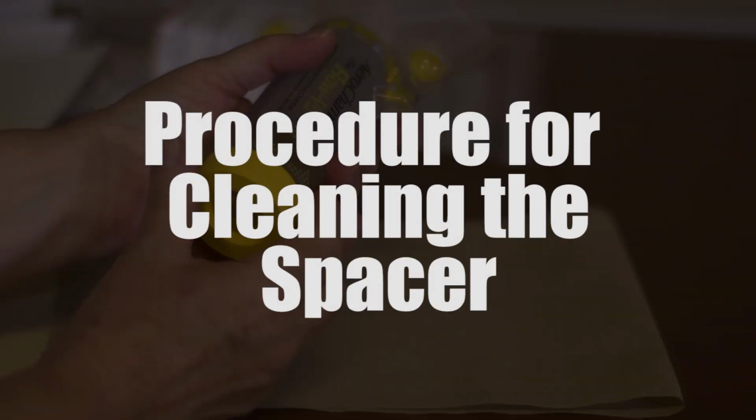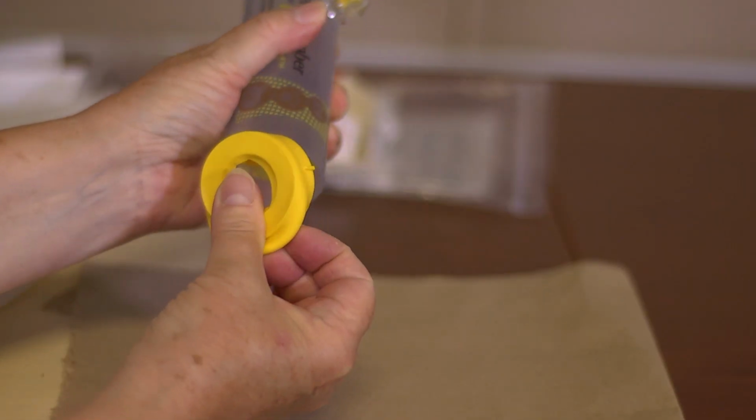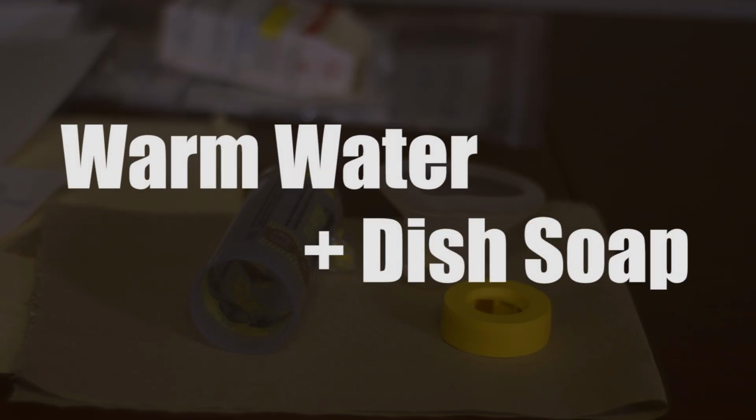Procedure for cleaning the spacer. It is recommended to clean the spacer every 1 to 2 weeks, or more often if needed. Remove the mouthpiece and the rubber piece that holds the inhaler. Soak the mouthpiece, rubber piece, and plastic chamber in warm water and a small amount of dish soap.